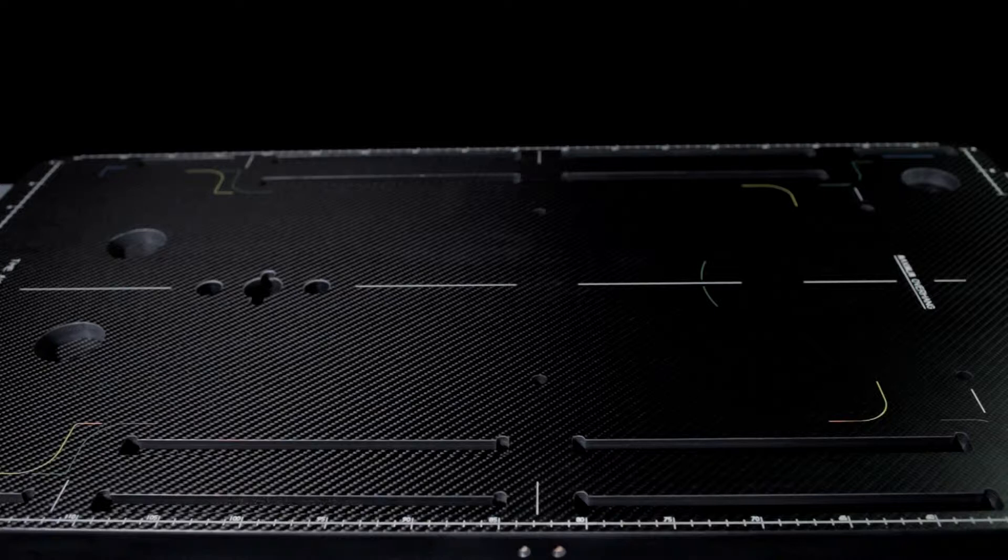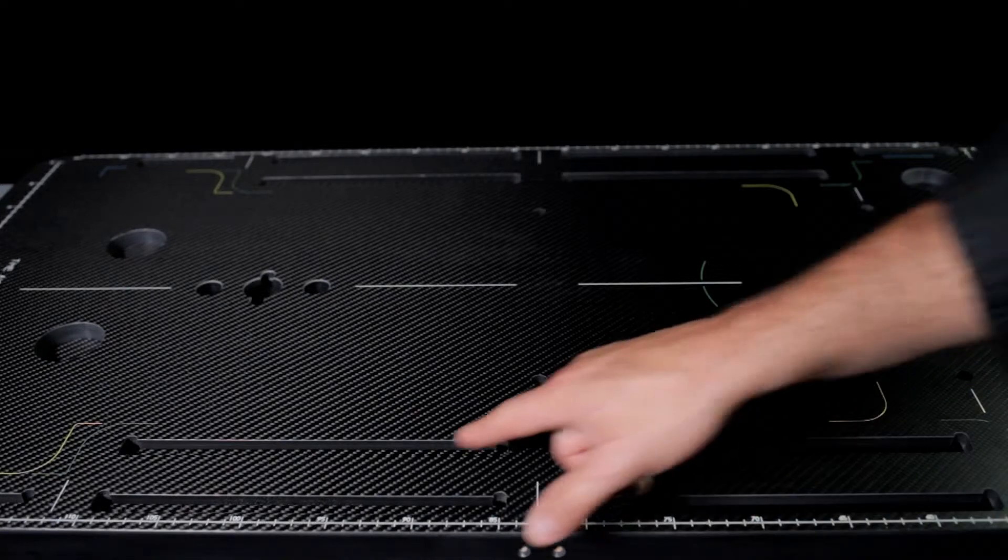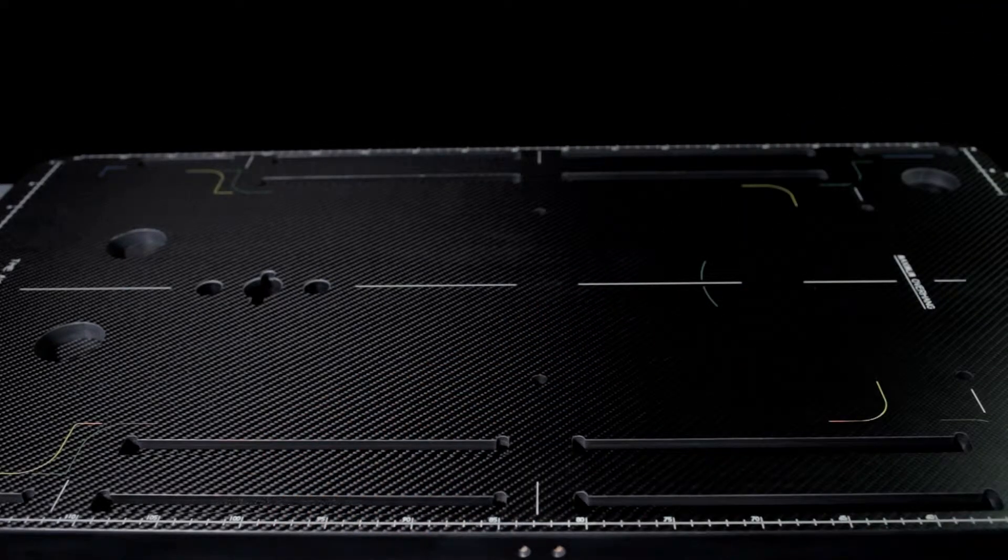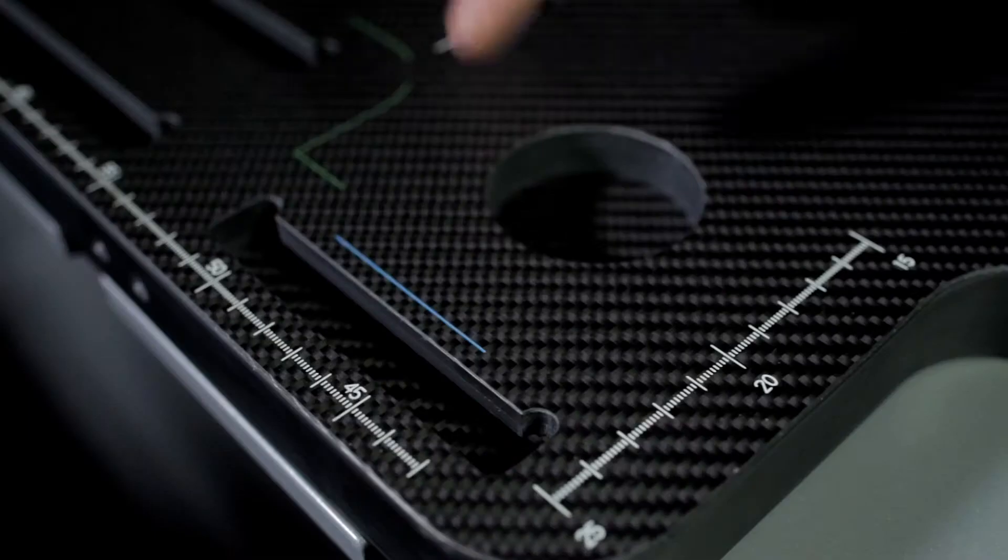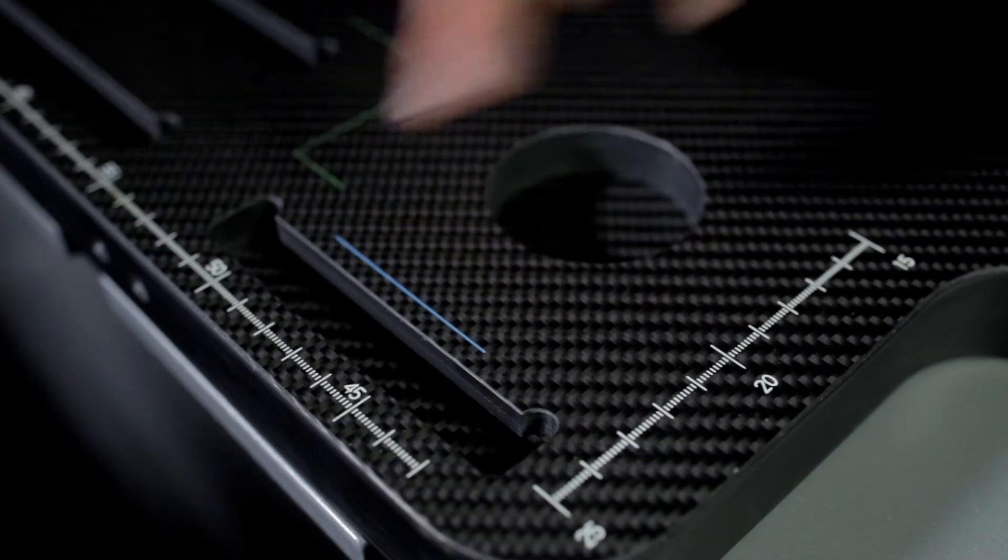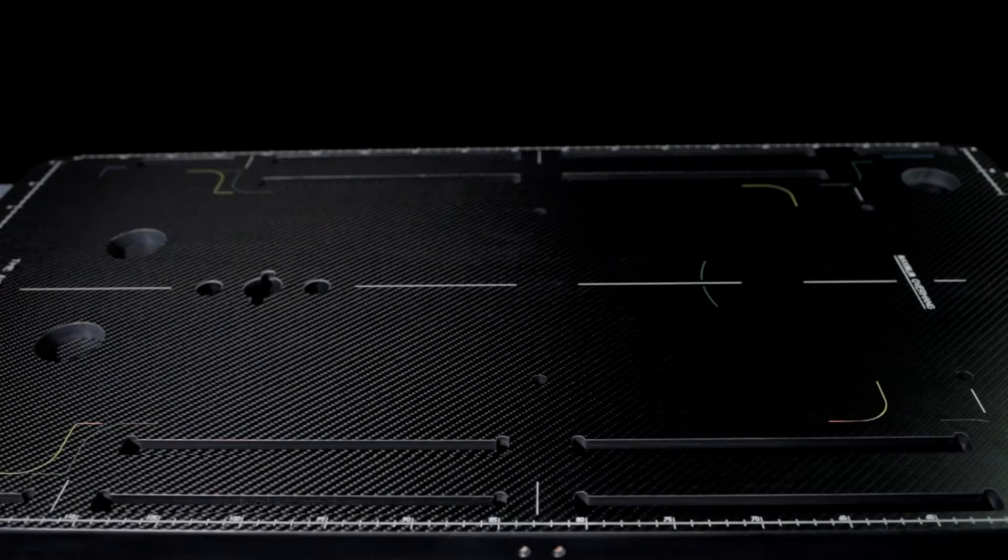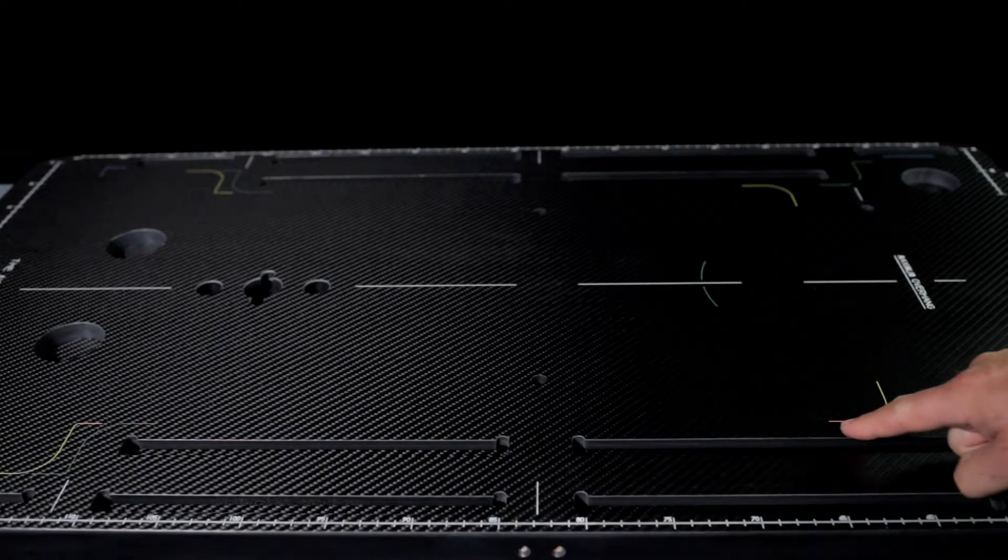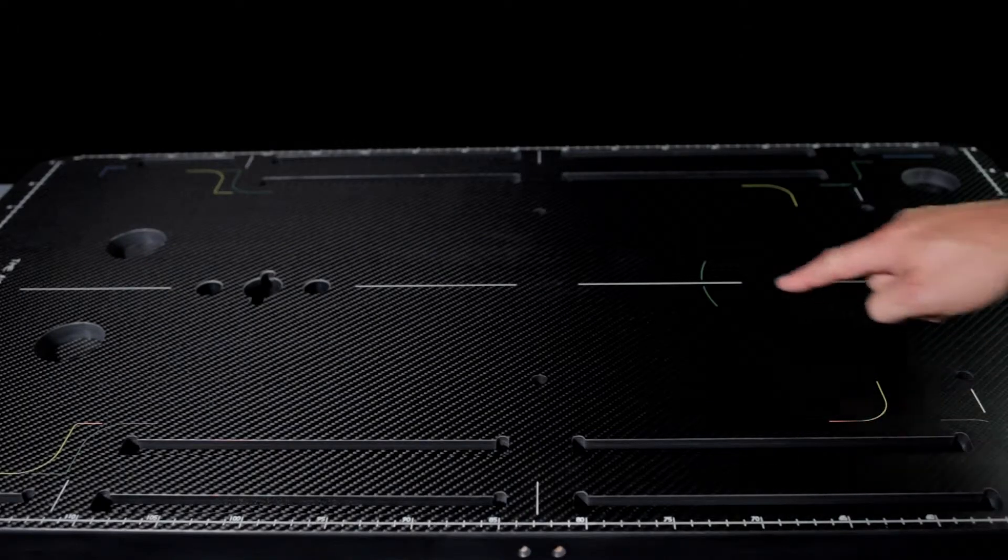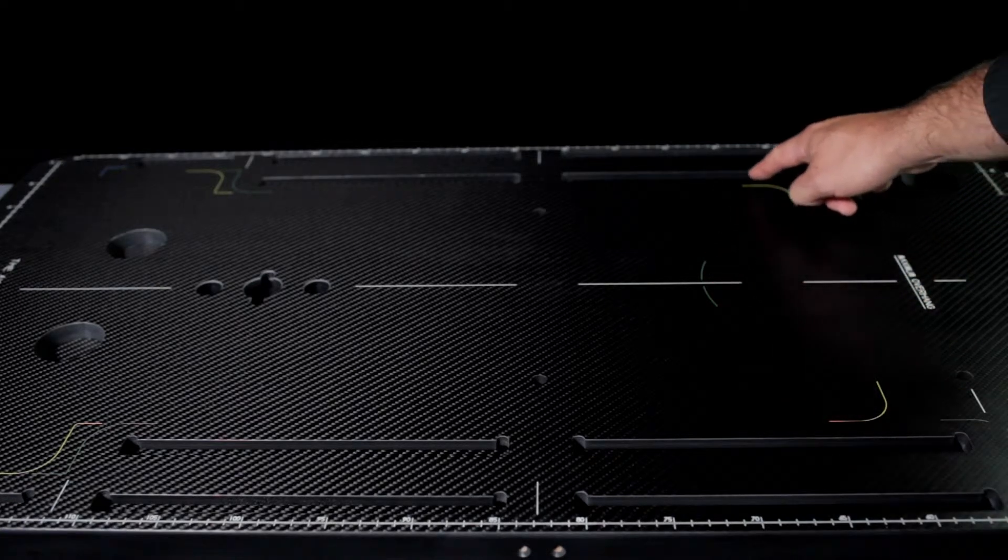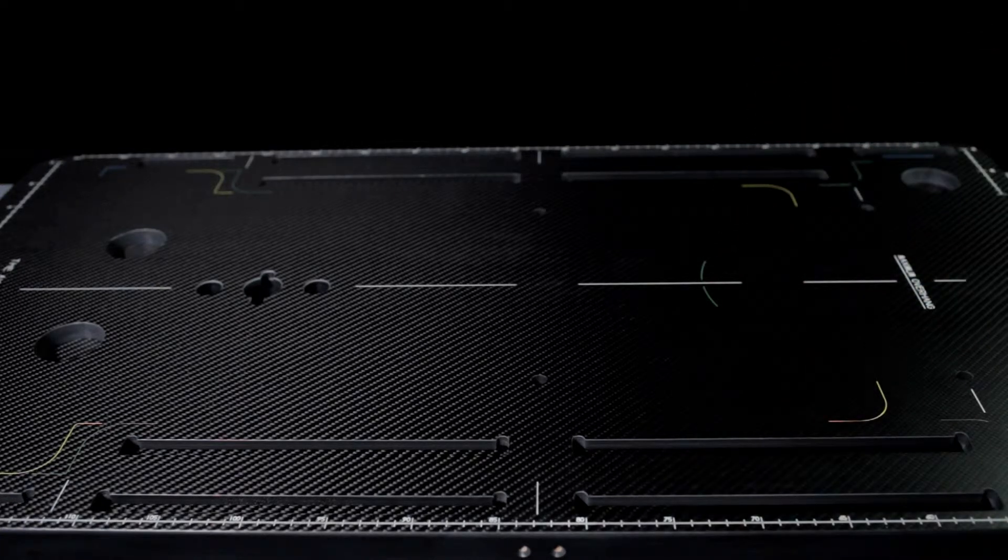The base plate has a number of slots allowing the immobilization mask to be attached. The plate also has color markings to help position the various AIO cushion sets.